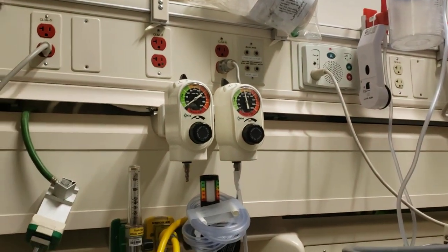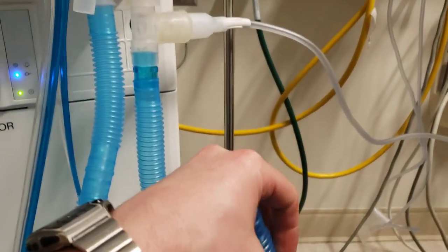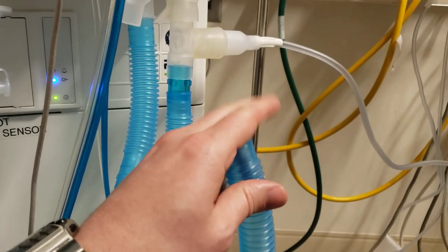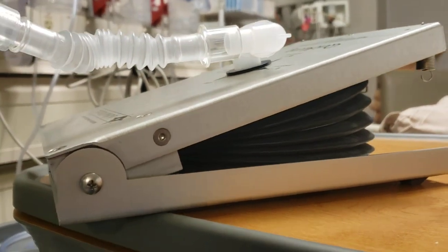In reality, I only have it at, I think, 90 centimeters right now, and it is very, very strong. If I occlude this, you can actually feel the air getting sucked in through the room, as well as from the patient. Of course, this is just our test lung.